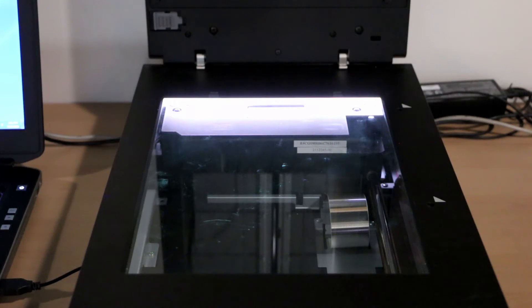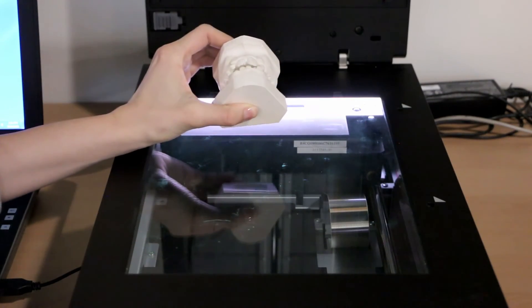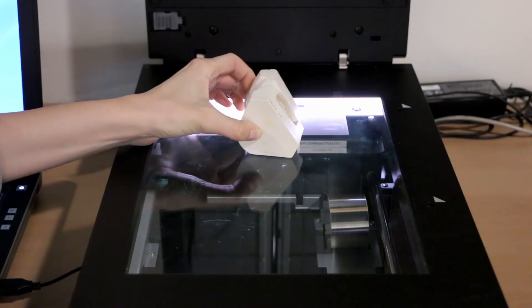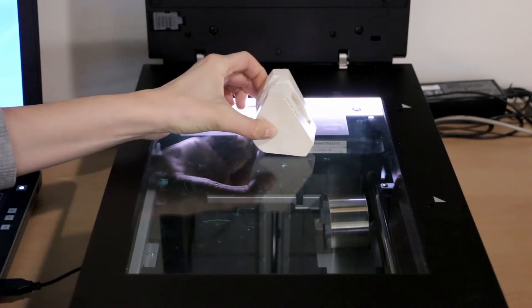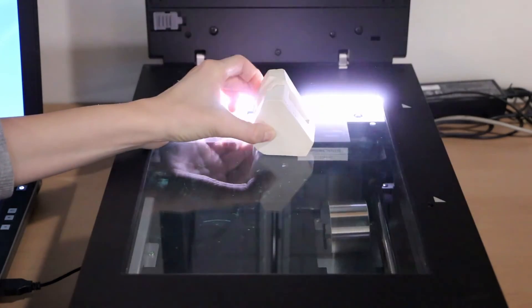Now for the right and left views. Articulate the models so that the occlusion is accurately portrayed.